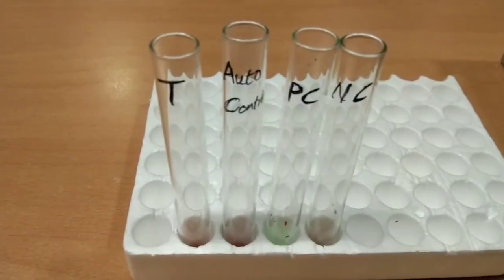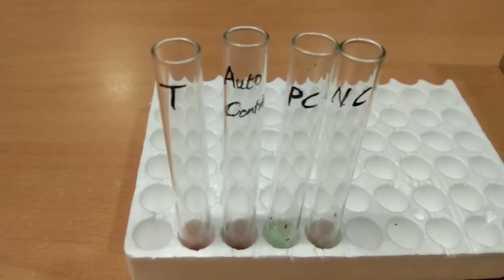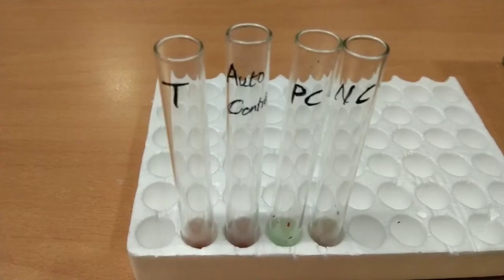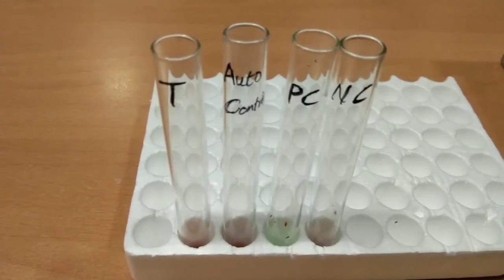So, the indirect Coombs test is negative. It indicates absence of incomplete or unexpected antibodies in patient serum. Thank you.